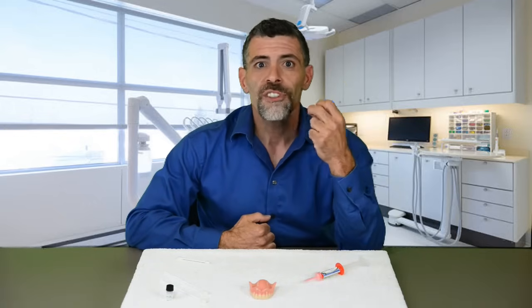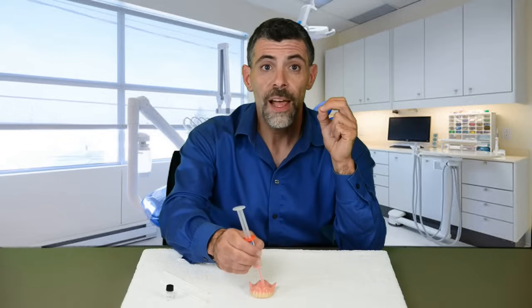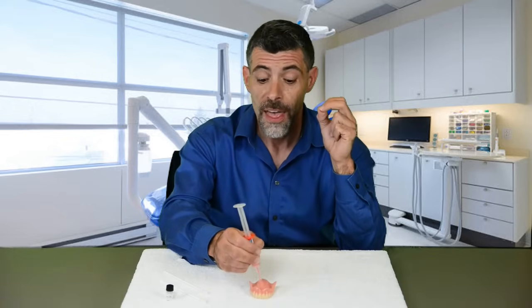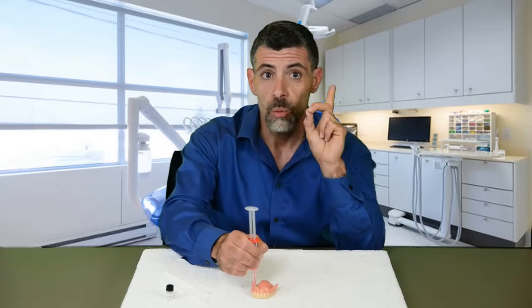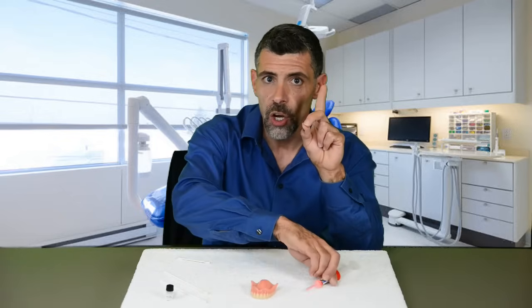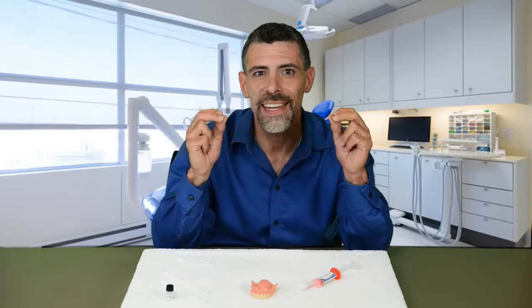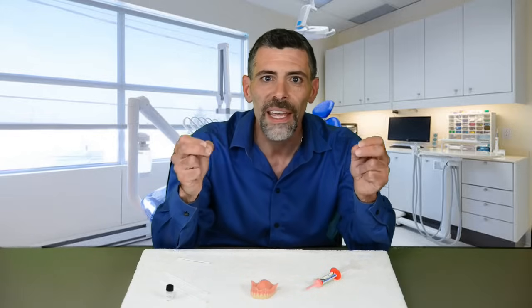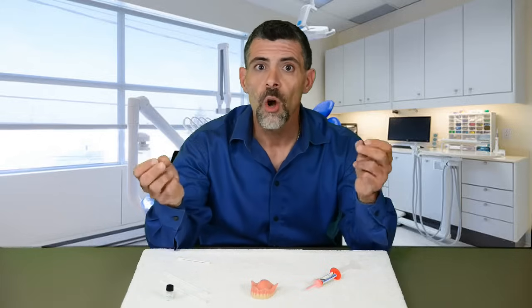First, listen while I talk you through the process. You will apply three lines to the palate of your denture, then empty the rest of the applicator into the trough. Work quickly — focus on getting the silicone on the denture and then into your mouth fast. The silicone does not need to be neat or pretty; it is most important to get it on there and get it into your mouth quickly.